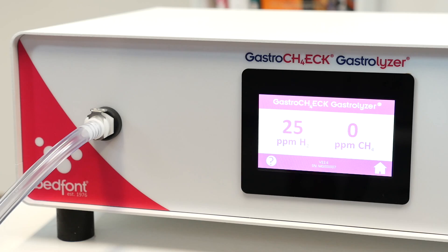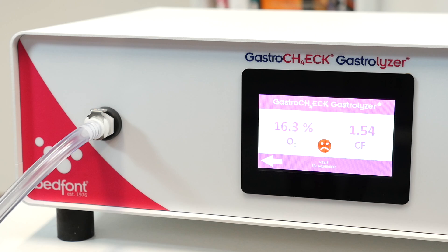If you feel like you are struggling to complete the breath test, you can stop early by pressing the End button. The final results will be shown on screen. Press the question mark for a visual indicator of the results.